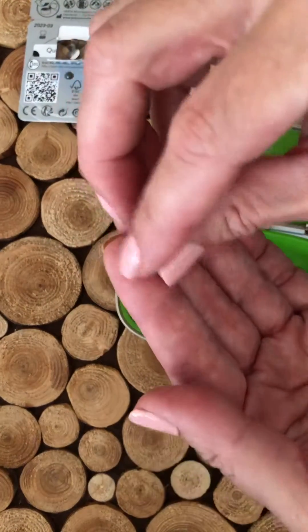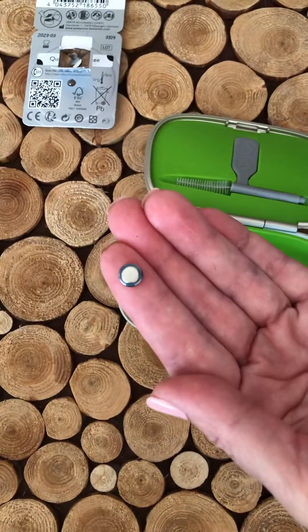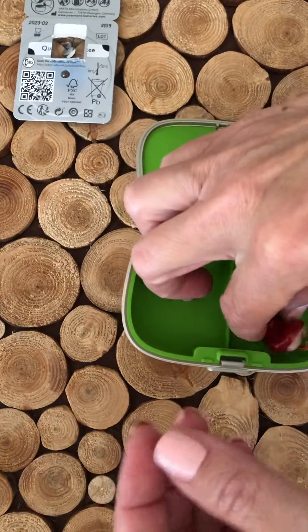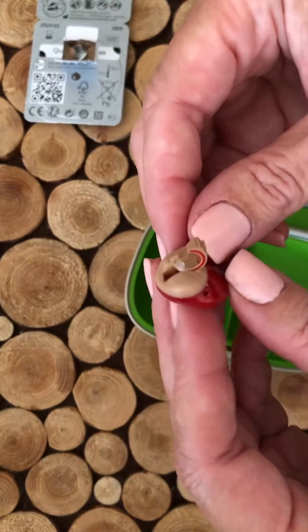Where I took the sticker off, that's the flat side of the battery, and then the opposite side has a ridge around it. Here is our custom right hearing aid — we know it's right because it has red on the hearing aid.